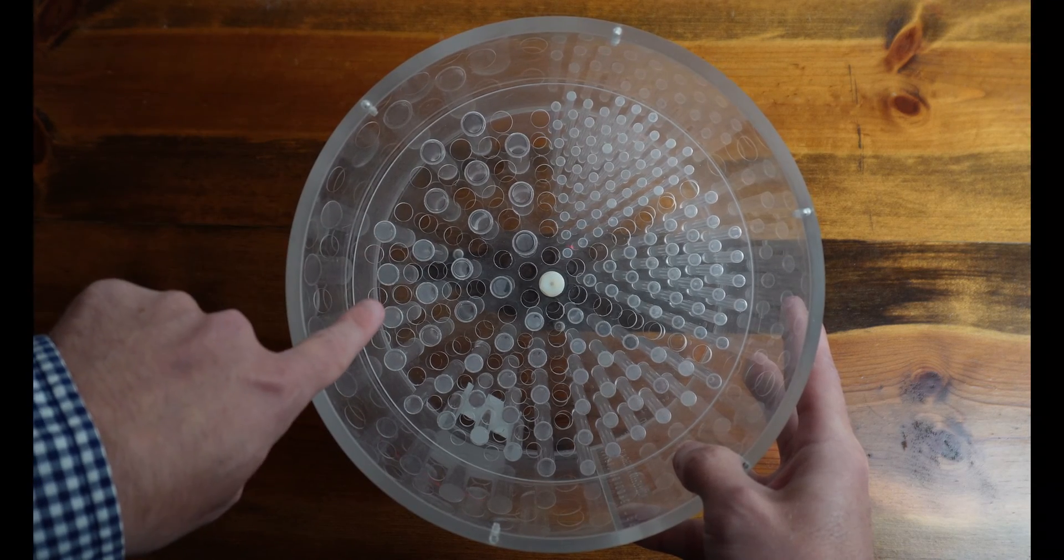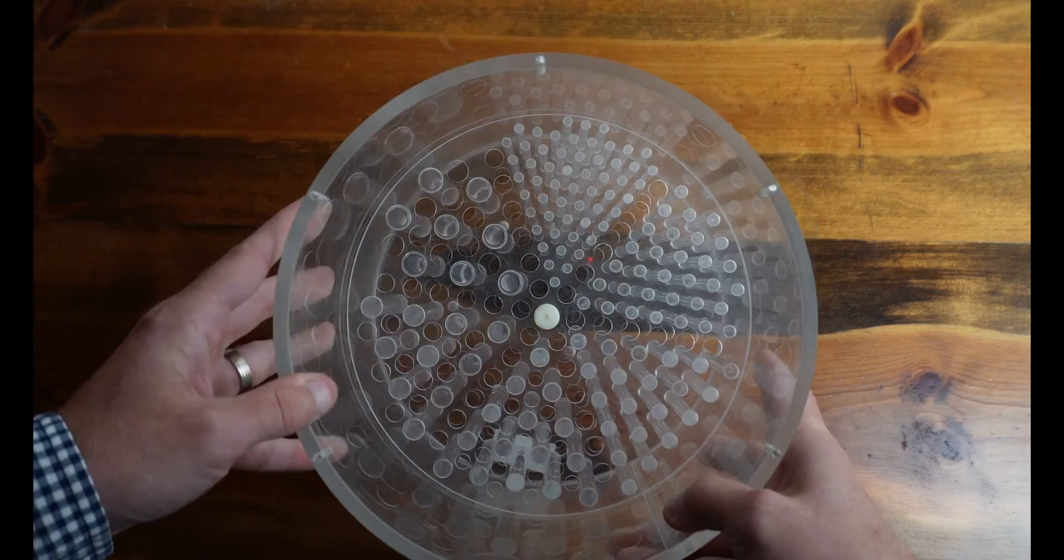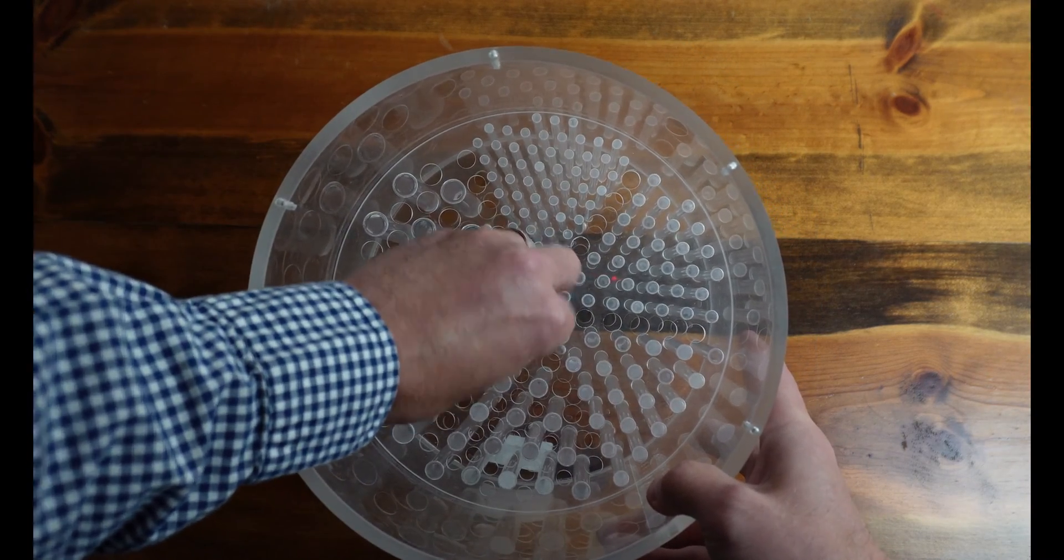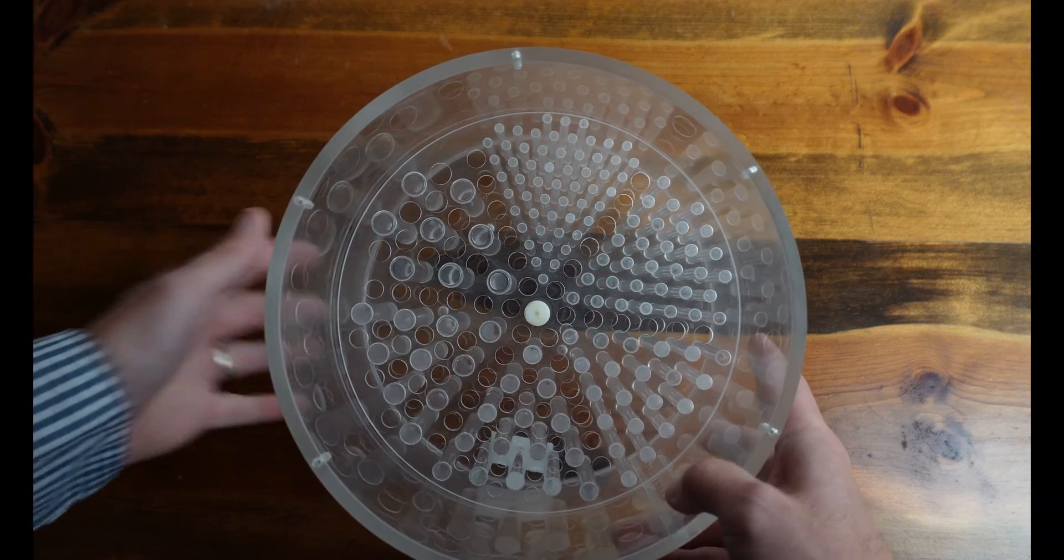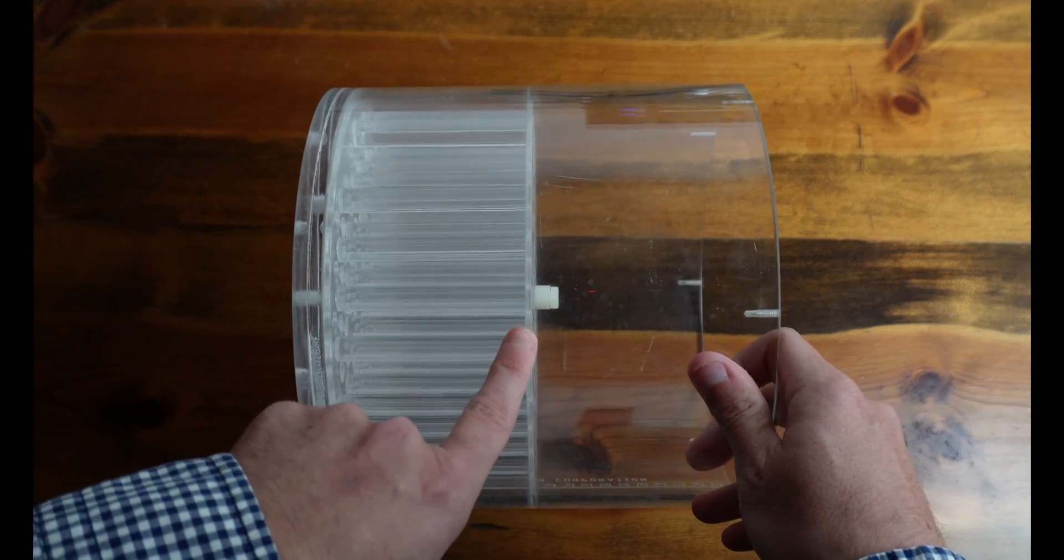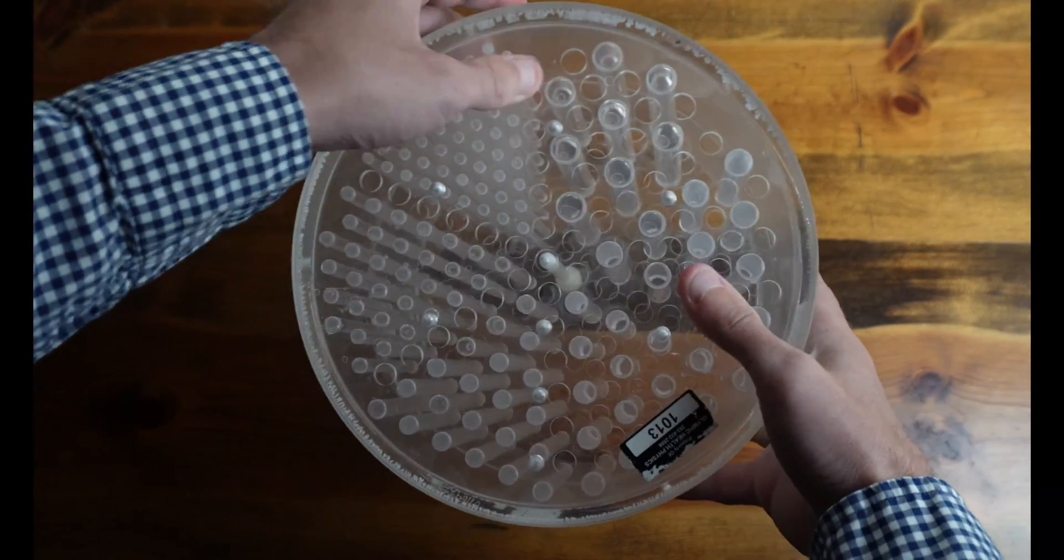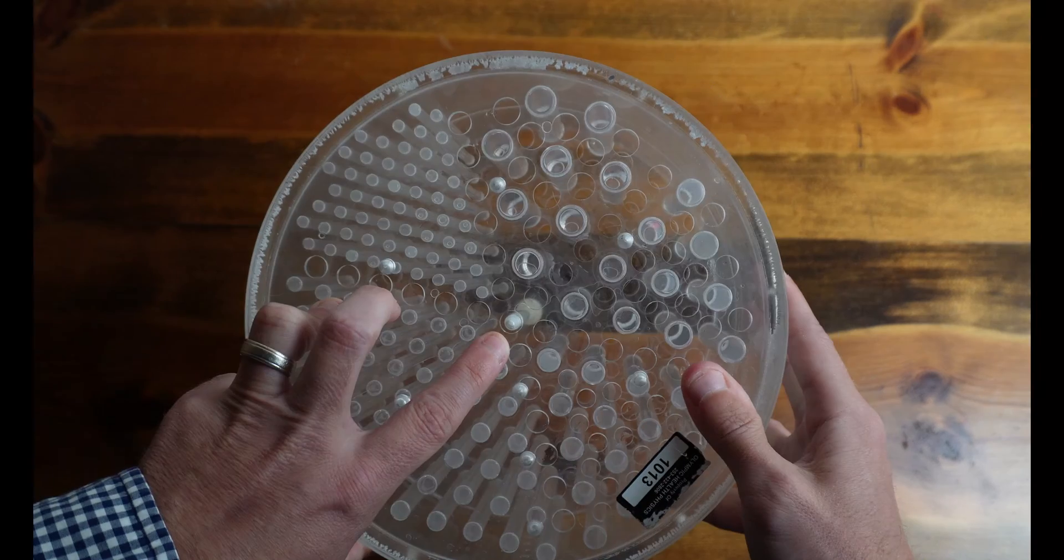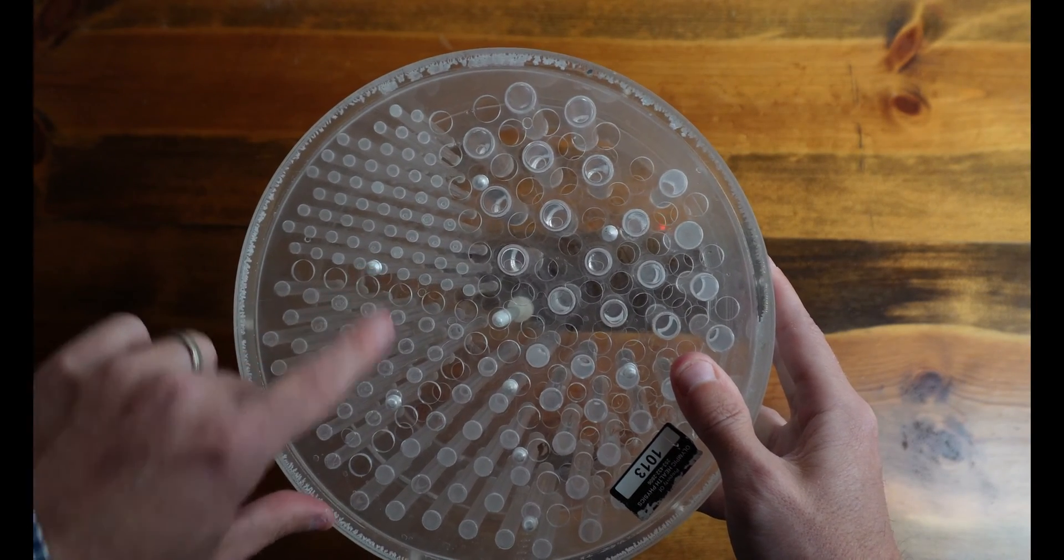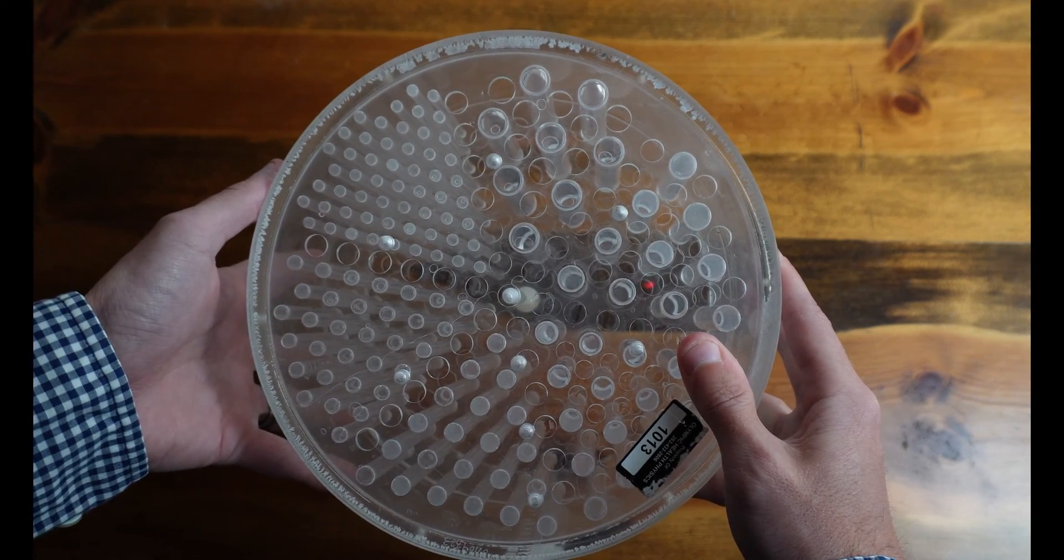And then we go to progressively smaller and smaller rod sections. The rod section is held into the Phantom by a center screw. This is a nylon screw that goes all the way through the rod section and screws in. There are threads here on the bottom. And then we'll also see that we have threads here. This is where our contrast spheres will go.